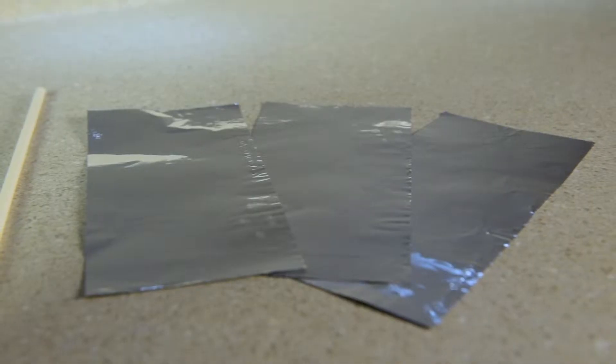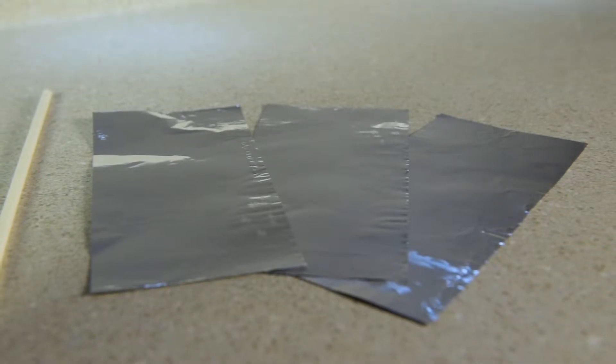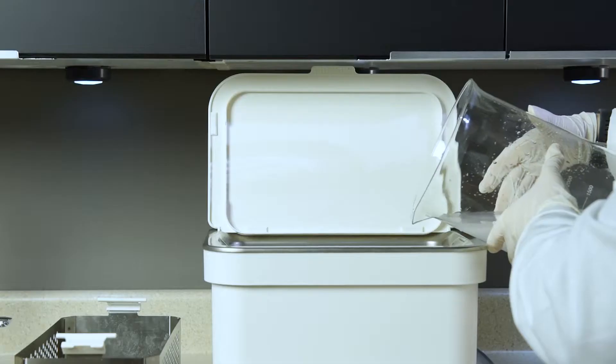If you don't have the FT1 test kit, you can use three strips of regular weight aluminum foil.